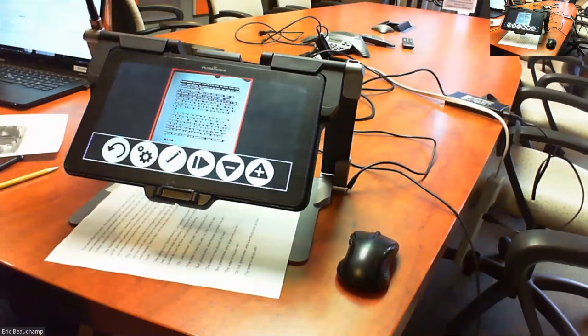So I have a little concern here. The biggest problem I have with OCR is that sometimes the words are gibberish, meaning that there's errors. What can be done so that the words are captured exactly as they are typed on the handout?